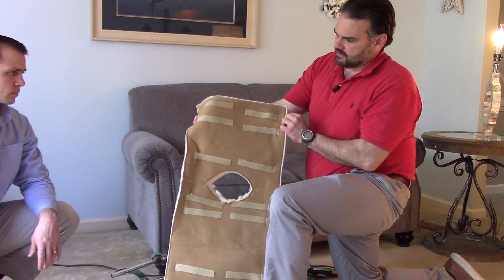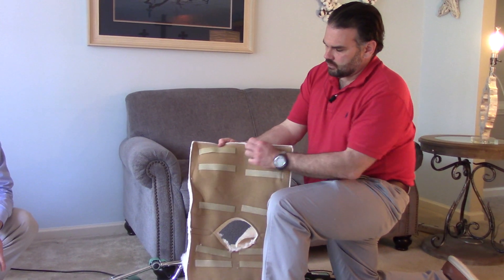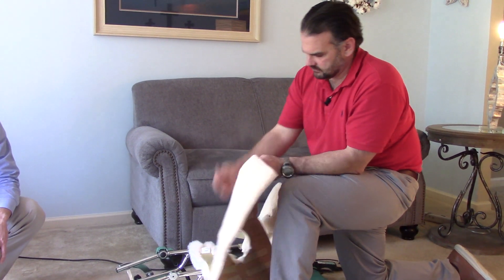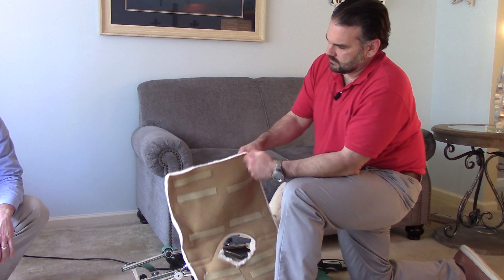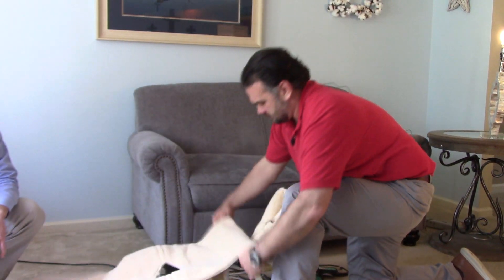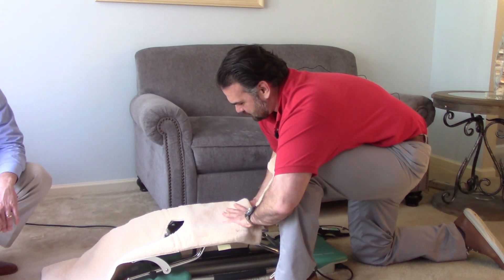And then we're going to start with the cover. It's going to cover the frame and make it a little bit more comfortable for you to sit in the CPM. There are more Velcro straps that are going to connect along the frame. You actually start with this end as the top, so the ones that are closest will go up here. We'll just undo this and this. It is a lot of Velcro, so it is very sticky — you are going to probably be attaching and de-attaching, and it does get stuck on itself sometimes.